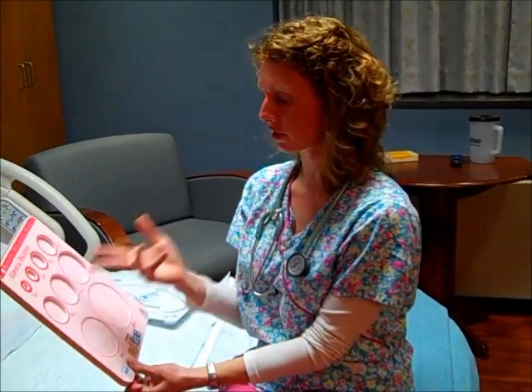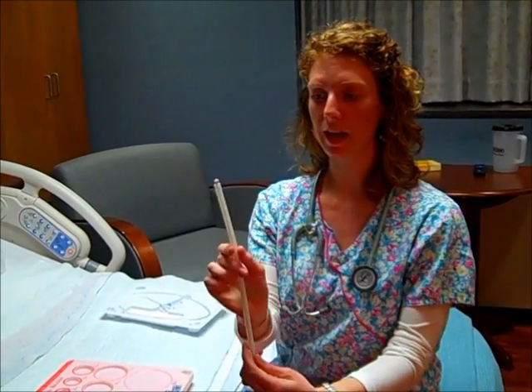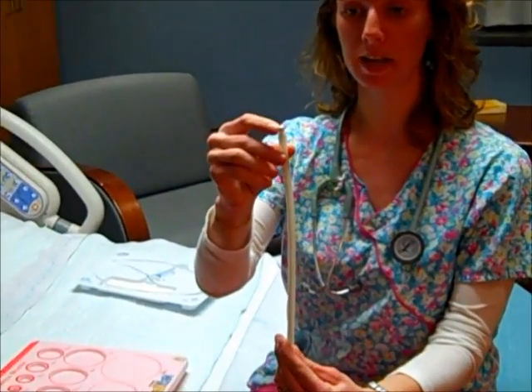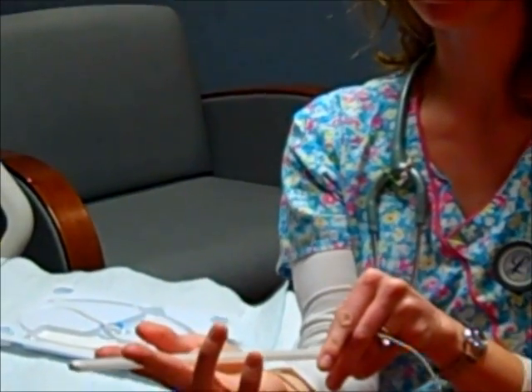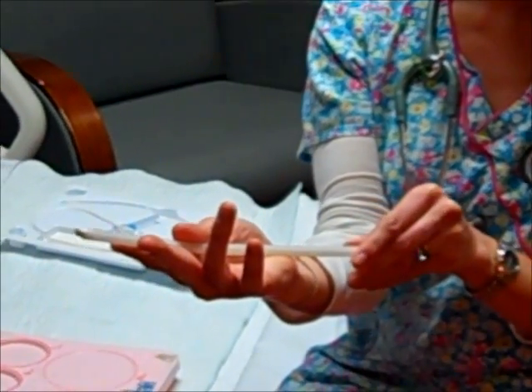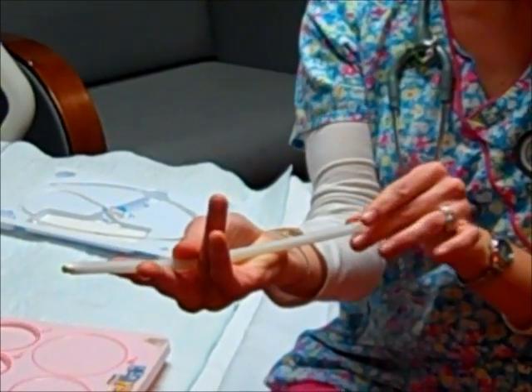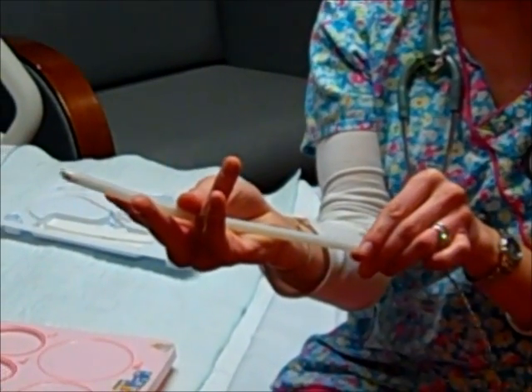So to insert the fetal scalp electrode, the practitioner is going to be in a sterile fashion. They'll have sterile gloves on, and they will do a vaginal exam, so they will know how far dilated the patient is, and they'll have their hand in there, and then they will slide this tool, and see that little tiny metal electrode right there? They're going to slide this in and make contact with a hard spot on the fetus head, and then they're going to twist it clockwise, 2 rotations, until it's 2 millimeters into the fetal scalp.